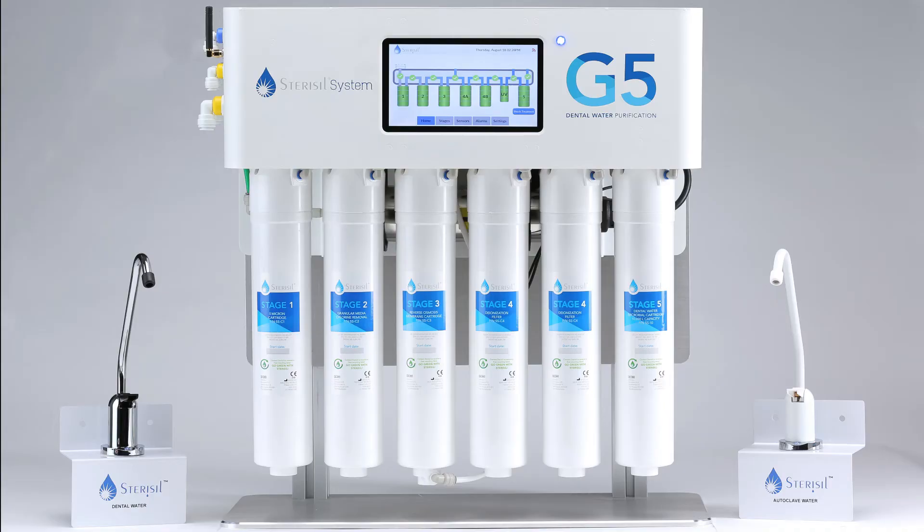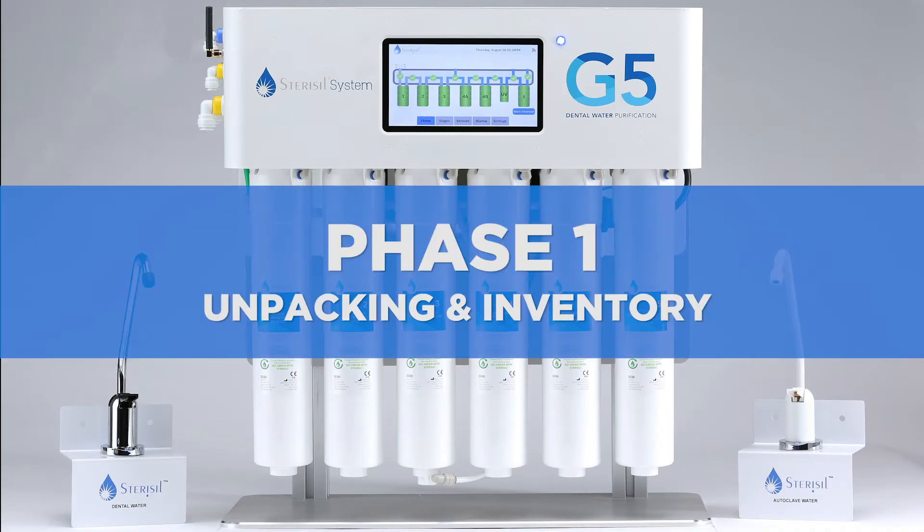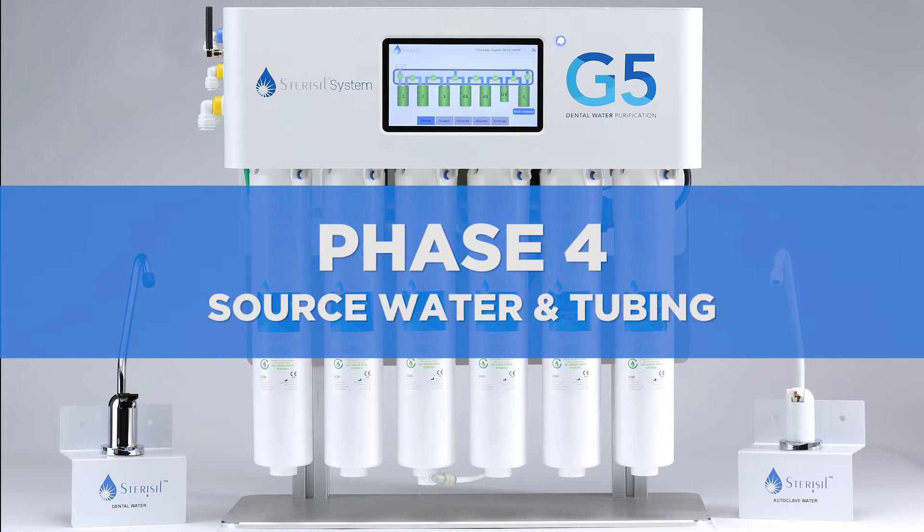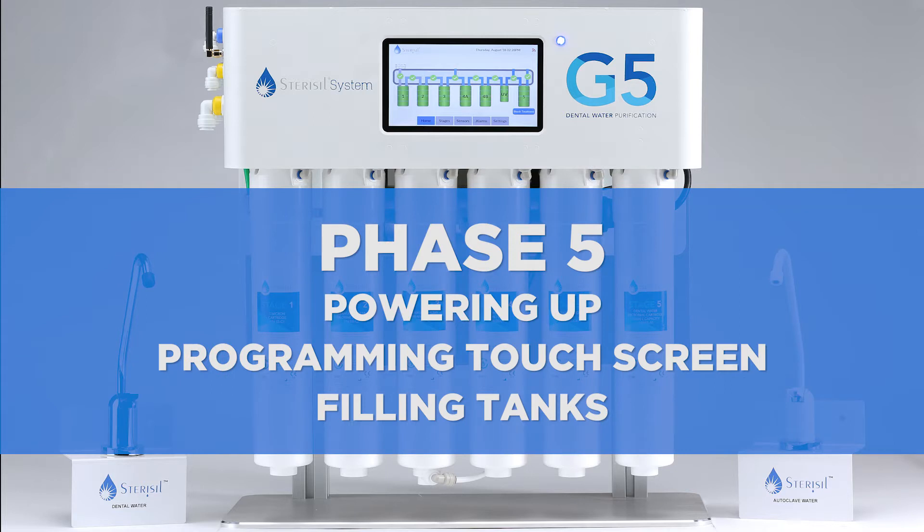This installation video is broken down into several phases. Phase 1, unpacking and inventory. Phase 2, mounting. Phase 3, cartridges. Phase 4, source water and tubing. Phase 5, powering up, programming the touchscreen, and filling the tanks.